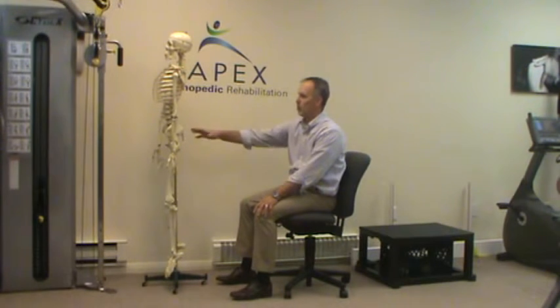Using this roll for lower back conditions really makes a big difference. A lot of people don't really feel it until they're sitting for a period of time. My big rule of thumb is not to sit more than 30 minutes at a time, especially if you have back problems. I'd at least like to have you get up every 30 minutes and move around a little bit to change the position of your back. You can work on core and do all sorts of ab exercises, but if you don't use this roll or something to support that alignment, you're most likely going to develop lower back pain at some point in the future.